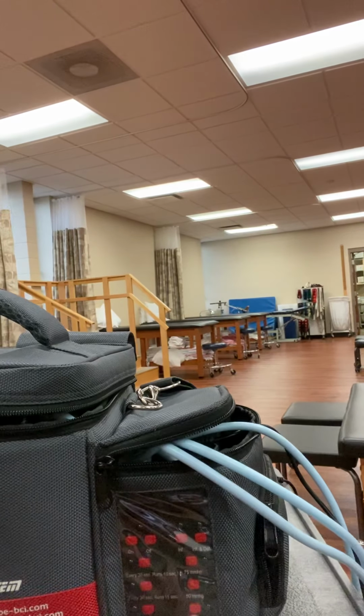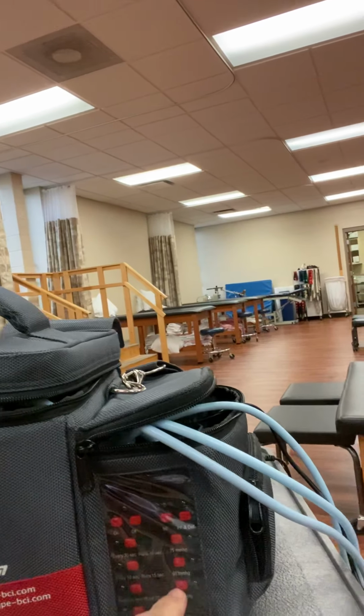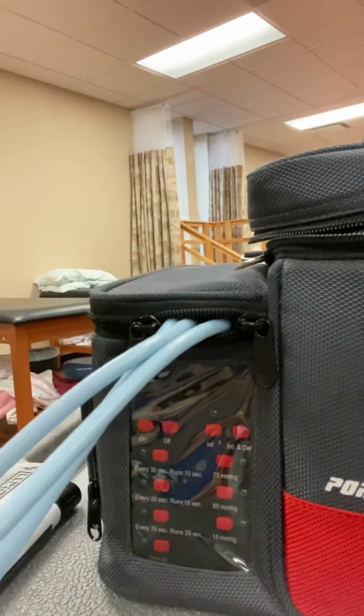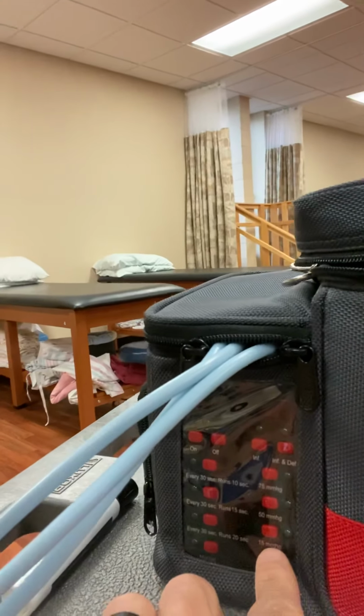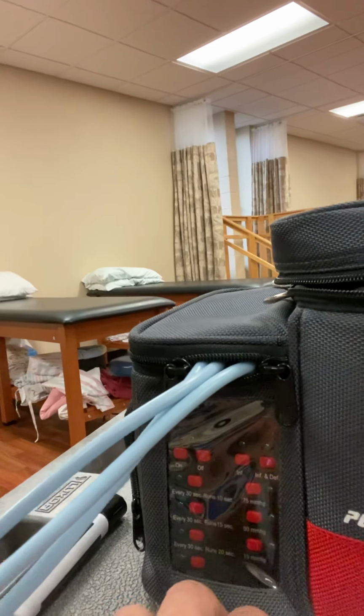But it also gives me this really critical selection right over here of how much compression do I want. And I know that's kind of hard to see there. Maybe you can see it on this side. 15 millimeters of mercury at the bottom, 50 millimeters of mercury in the middle, and then 75 millimeters of mercury at the top. So here's where it becomes pretty critical, therapists, is you got to be able to select and know what you're doing for what treatment. Again, 60 is about like the top number for your upper extremity, 80 about the top. I know that one goes to 90 for our lower extremities, and we want to kind of keep in that range. And your textbook has a great guide on that.